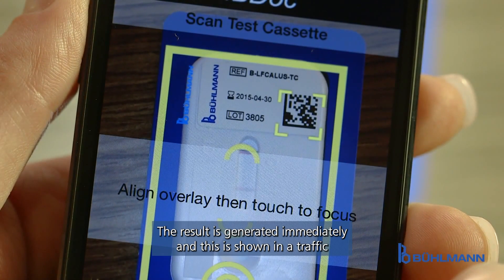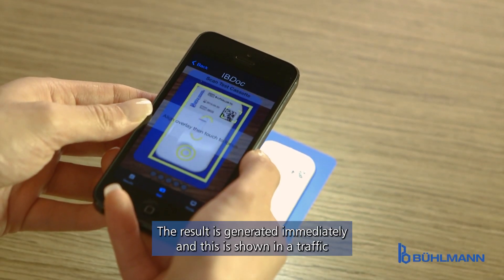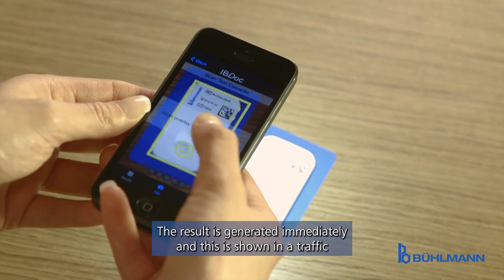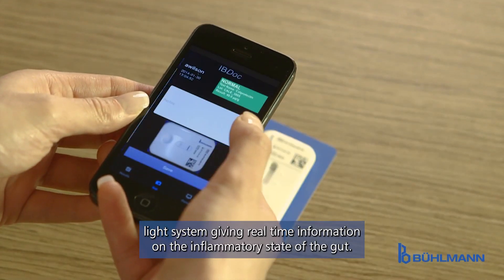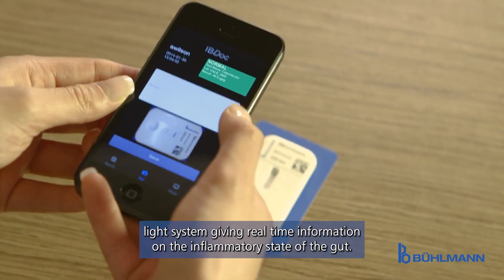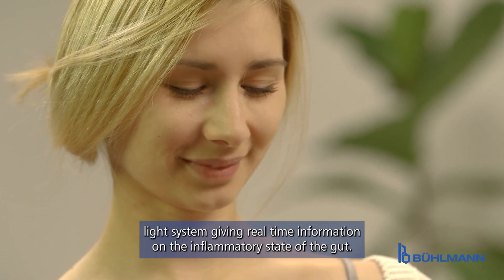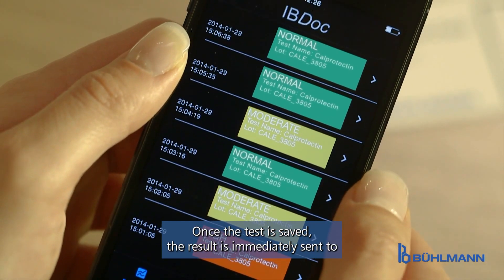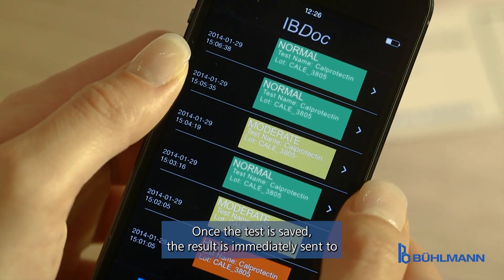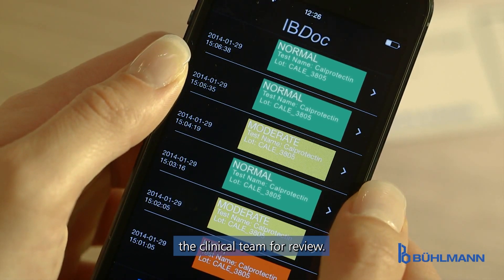The result is generated immediately and is shown in a traffic light system, giving real time information on the inflammatory state of the gut. Once the test is saved, the result is immediately sent to the clinical team for review.